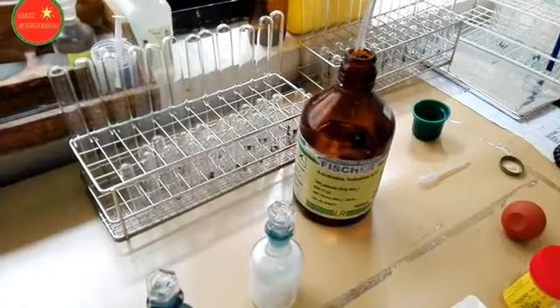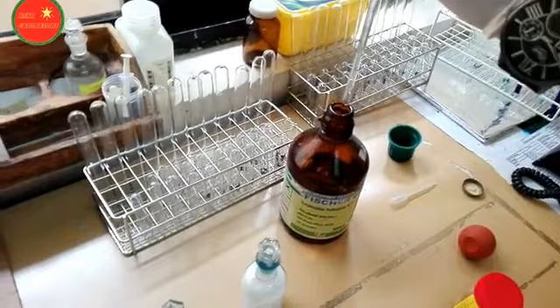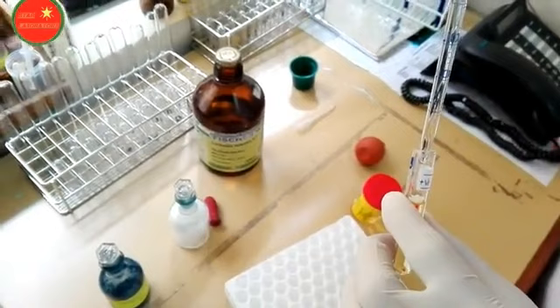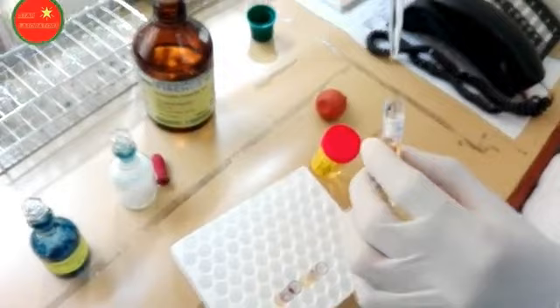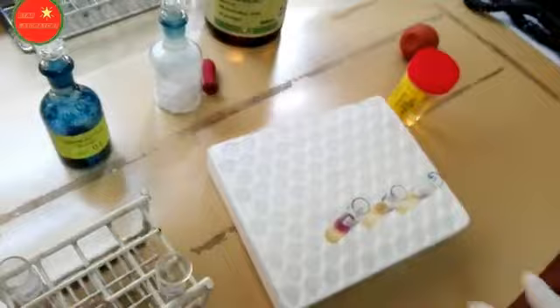Finally, add the strong ammonia solution into the test tubes without disturbing. This final step in the Rothera's test is very important — without disturbing, carefully overlay the strong ammonia solution onto the positive control, then similarly onto the test and negative control samples. After overlaying, wait for five minutes without disturbance.